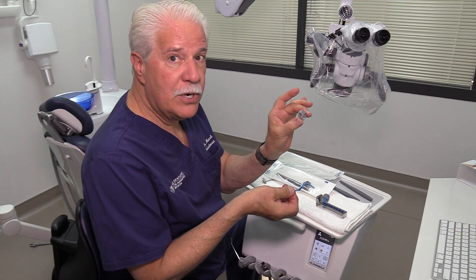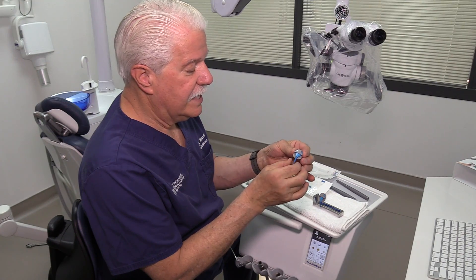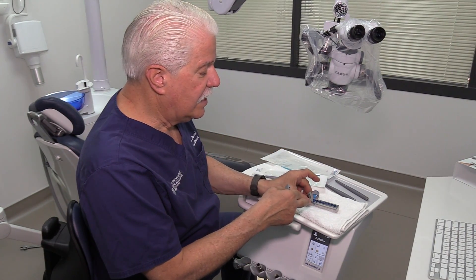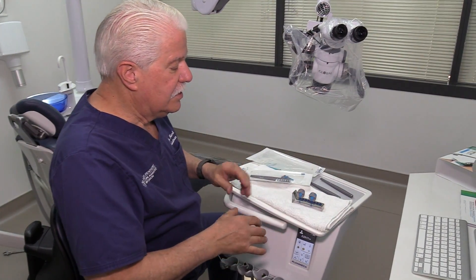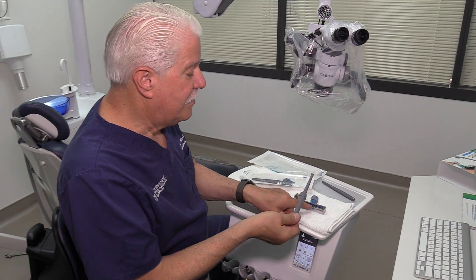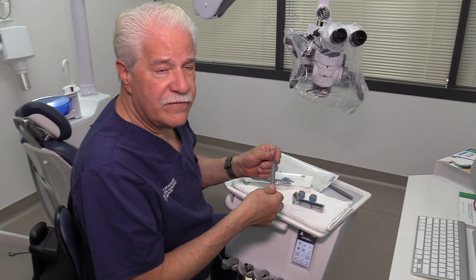They've come up with these little mirror protectors — mirror covers. You put the mirror in the cover and it clicks in place. You can see the size of the mirror since it's a number two. You can either put the handle and the number two mirror in a bag by itself, or they've got a little rack so you can rack a number of these together. You wouldn't necessarily have to sterilize the mirror and the handle together, and the handle fits all the different size mirrors.